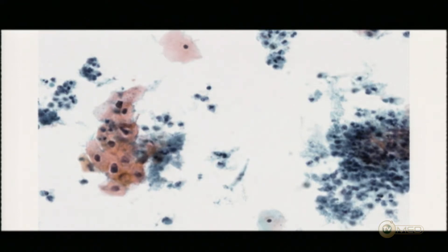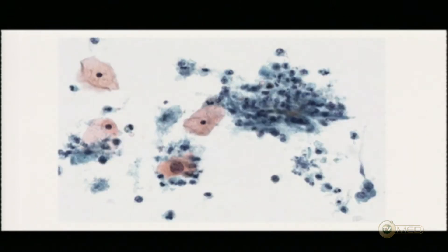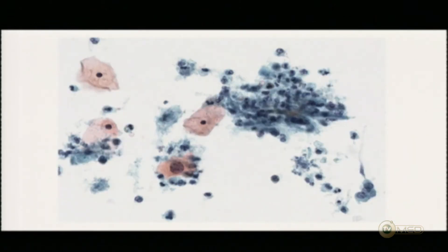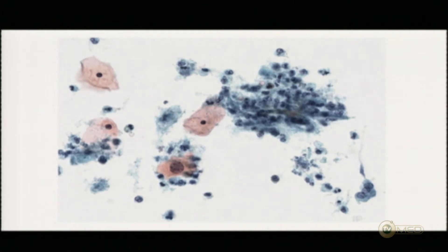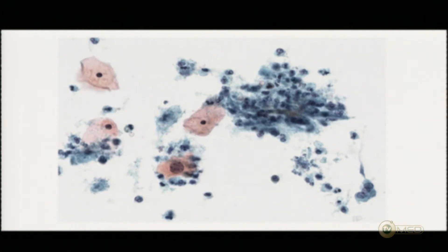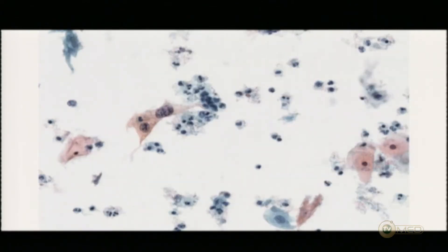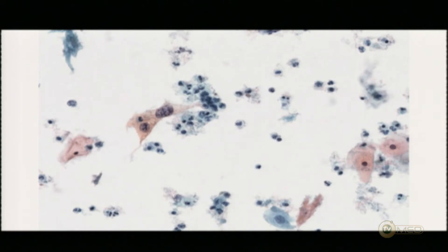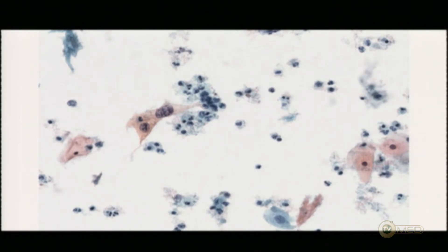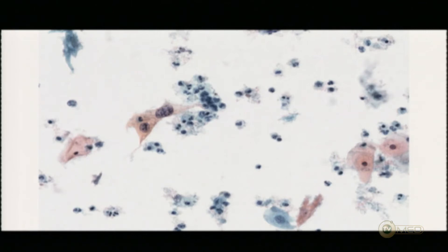If you look at those cells — have you understood the cells? And then if you look further you find that cell. And if you look even further you find these cells. And if you look a little more, a little further, you'll find these cells.